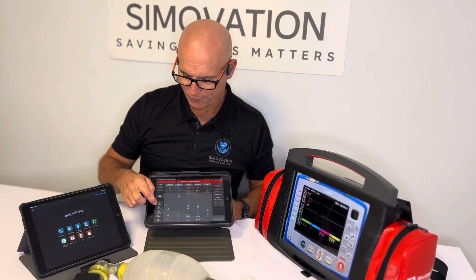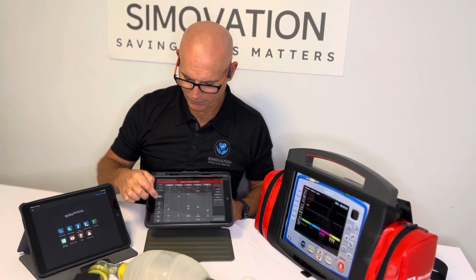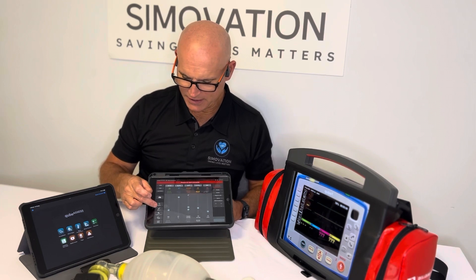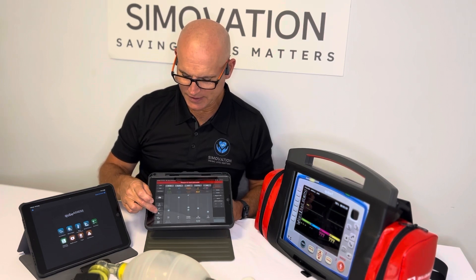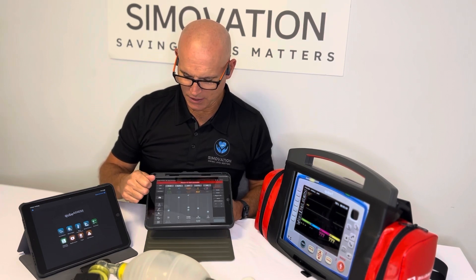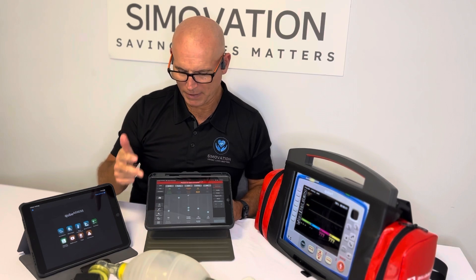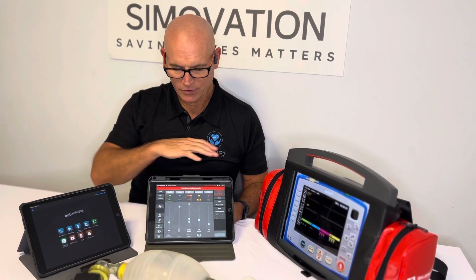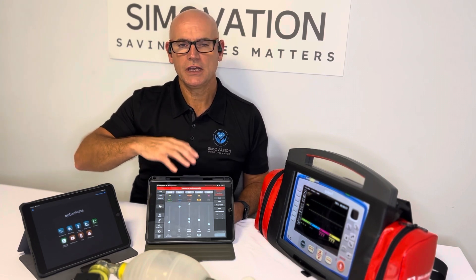You'll see there are four icons, but three ones we use typically. The first one is temperature, the second one is blood sugar, and the third one is for heart, lung, and bowel sounds. Remember, this is the instructor tablet, so this is for you to make those changes.